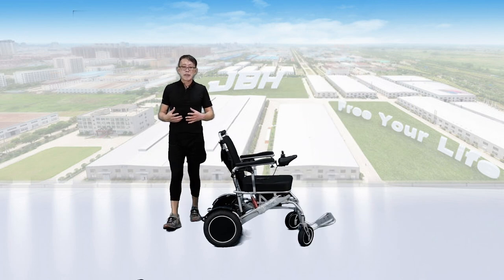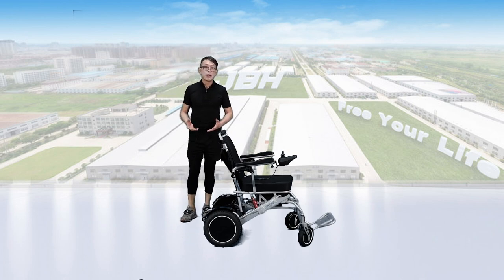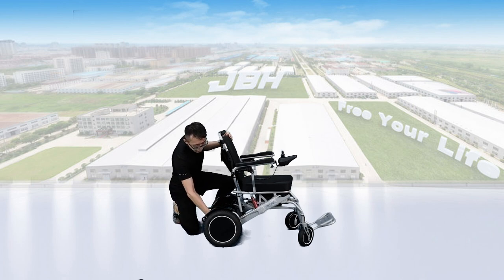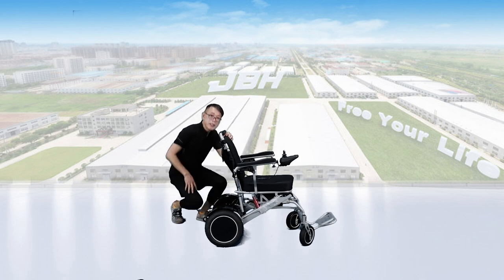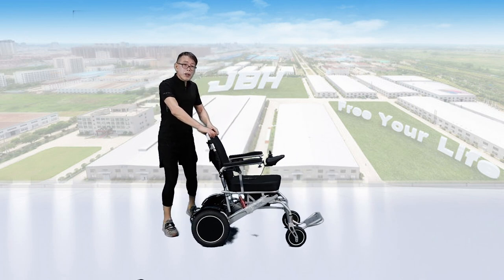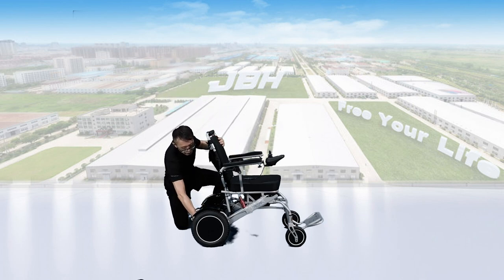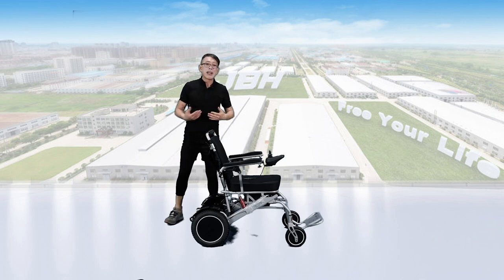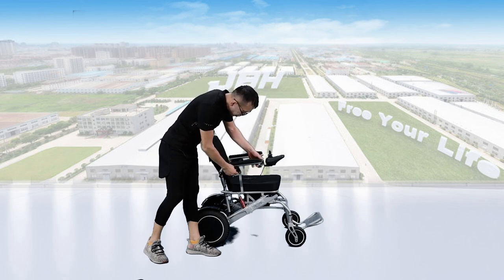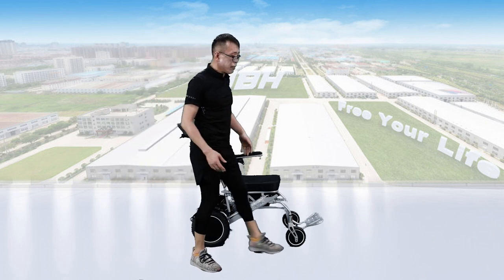The wheelchair has a freewheel mode design that allows you to switch between manual and electric control. Simply turn the lever to the front to enter manual control mode, which allows you to push by hand. If you want electric mode, put both levers to the back. To access the wheelchair from the sides, just turn the lever up — that allows you to flip up the armrest.